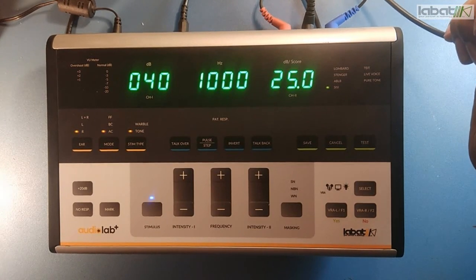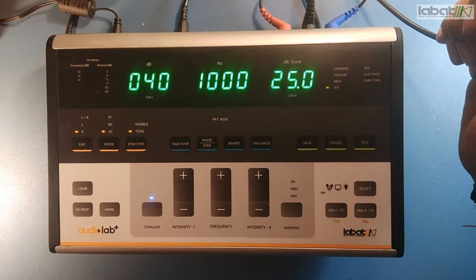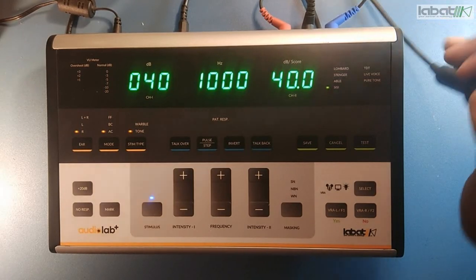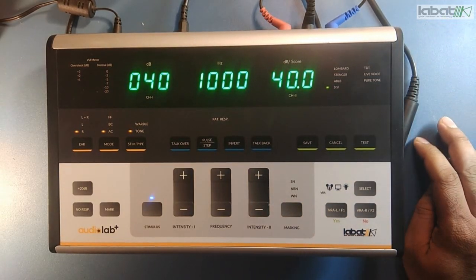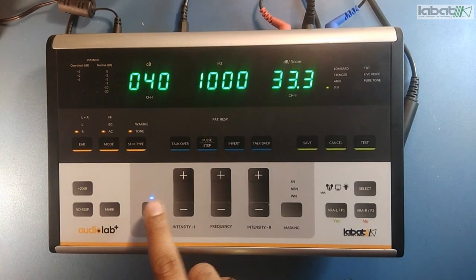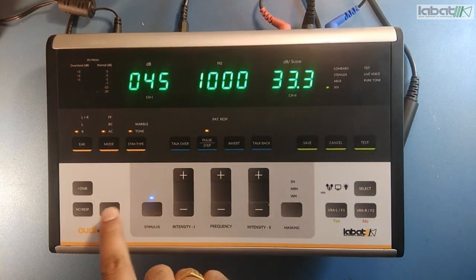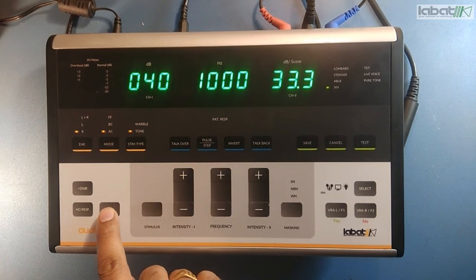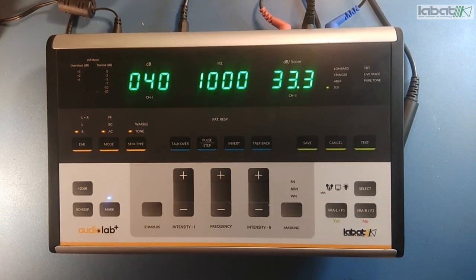Now you see it is showing 25. Again I pressed it — 40%. So this is how the percentage scale will increase. You can do it at different frequencies also. So I am marking it. I am stopping it at 1k. I marked it at 1k.